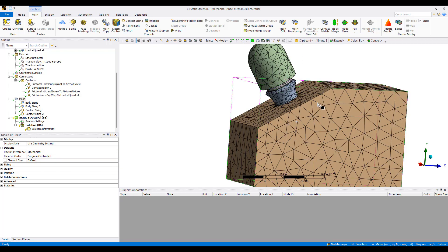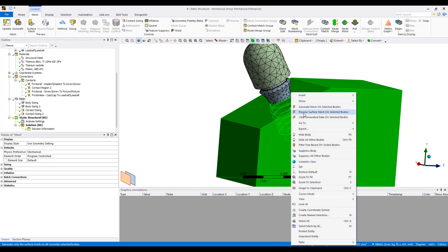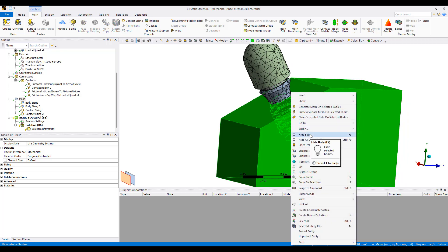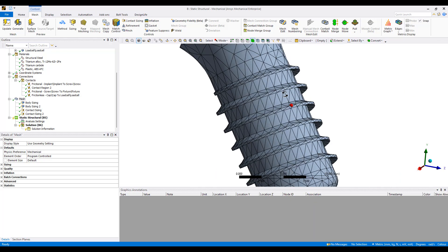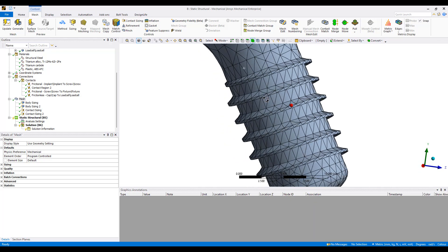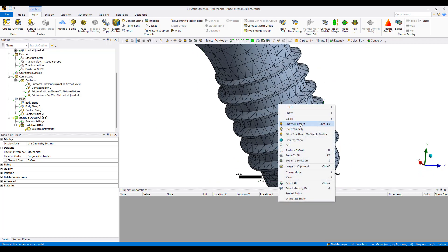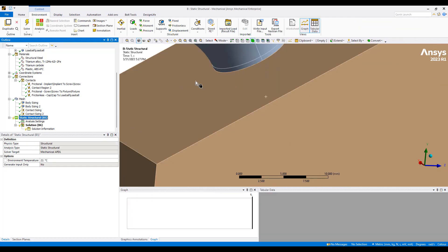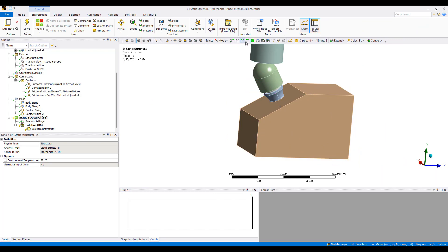The mesh is completed. If I hide this part now you can see we have smaller mesh. We can probably go a little bit smaller than that even. Now let's go ahead set up the simulation.